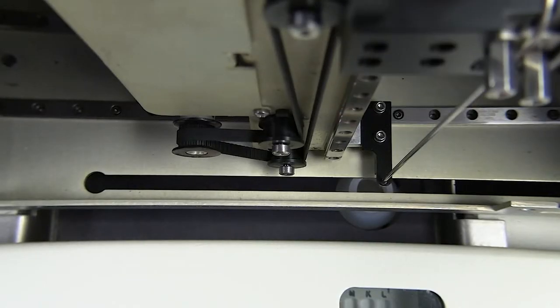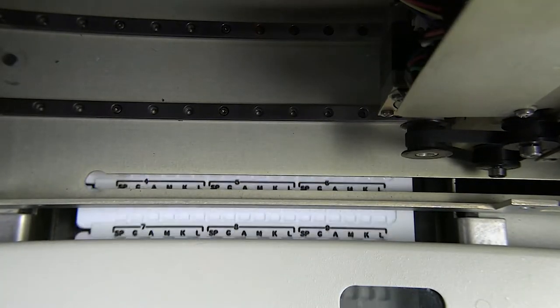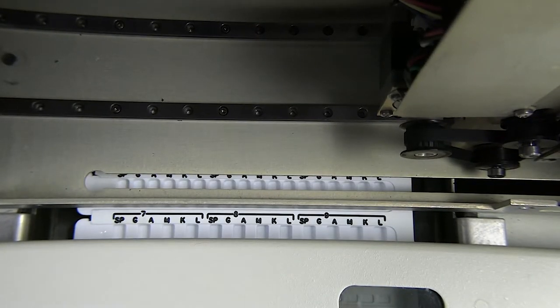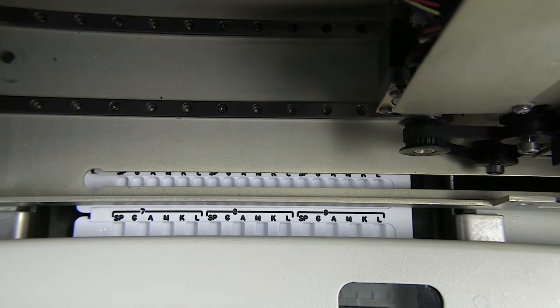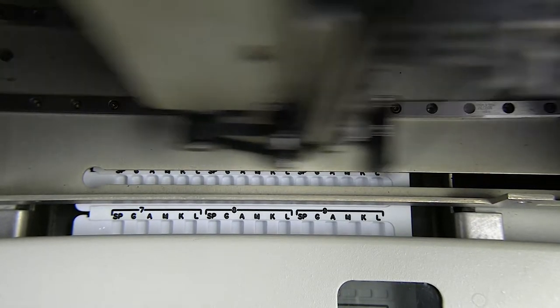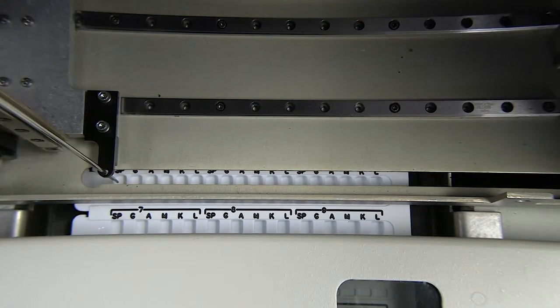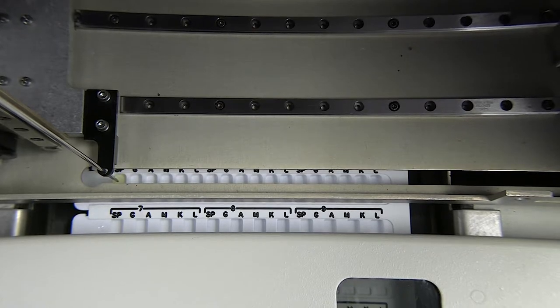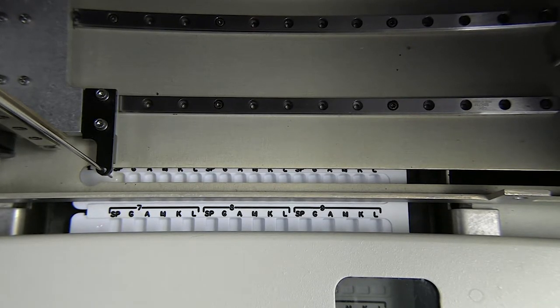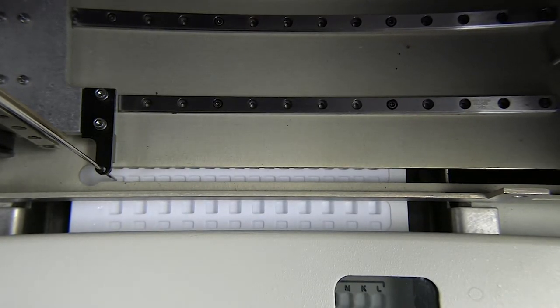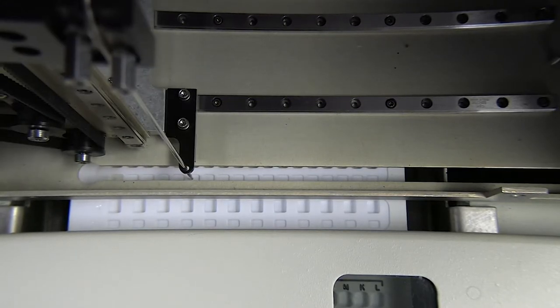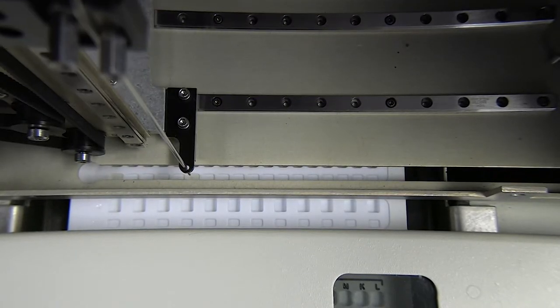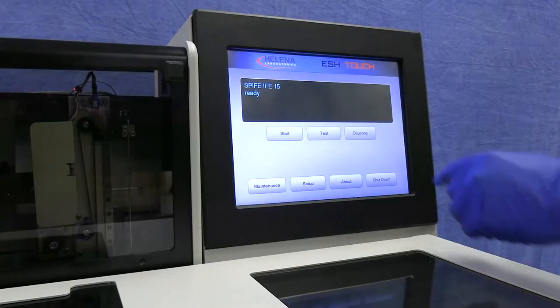Dilutions for up to 15 IFE patient profiles are made ready for gel electrophoresis. Sample prep for smaller gel sizes takes less time. Laboratories can choose between pre-programmed dilution schemes or customize as needed.